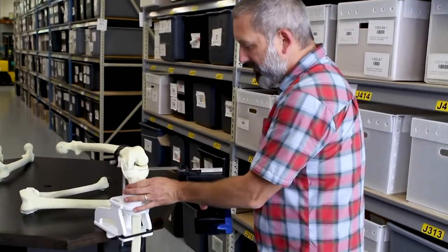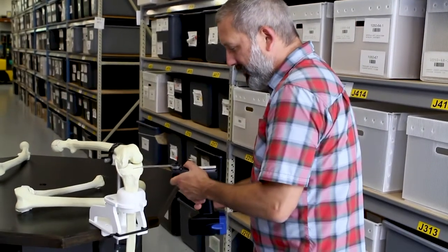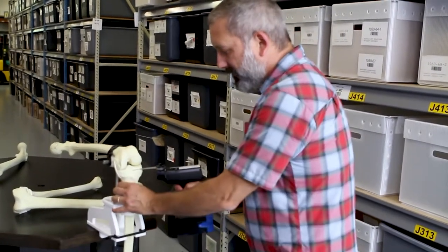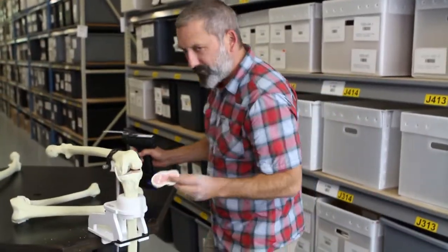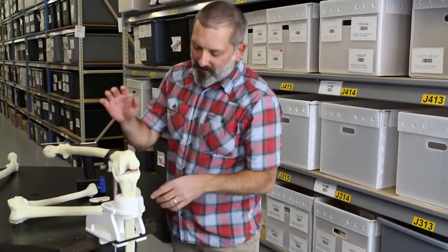Once you're set up, you can go through and make the cuts. There you go — there you have it.